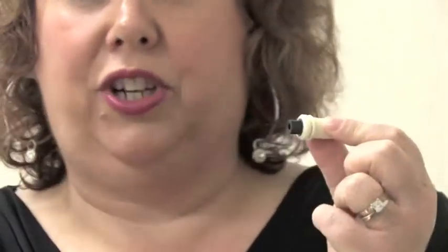They work in exactly the same way. This capsule you are used to plunging down the white plunger. In this capsule you plunge down the black plunger.